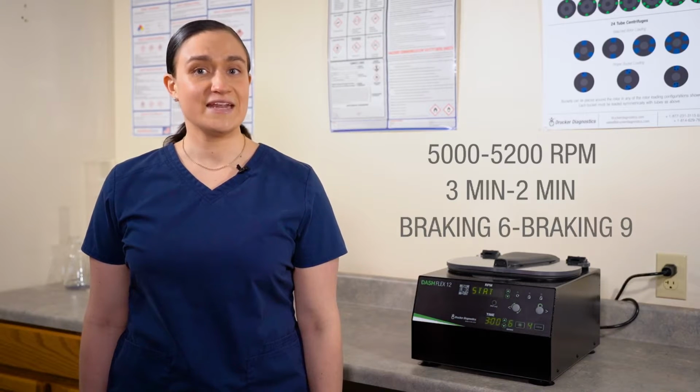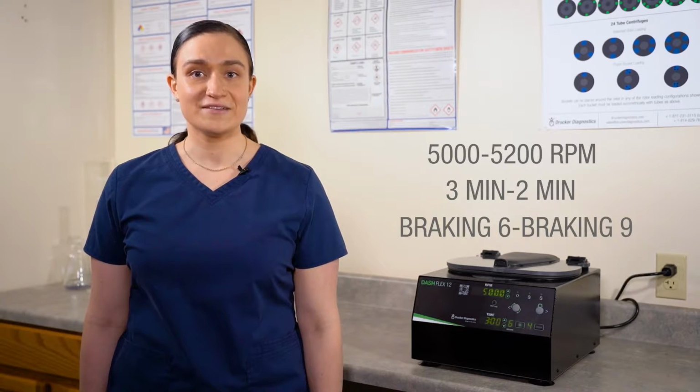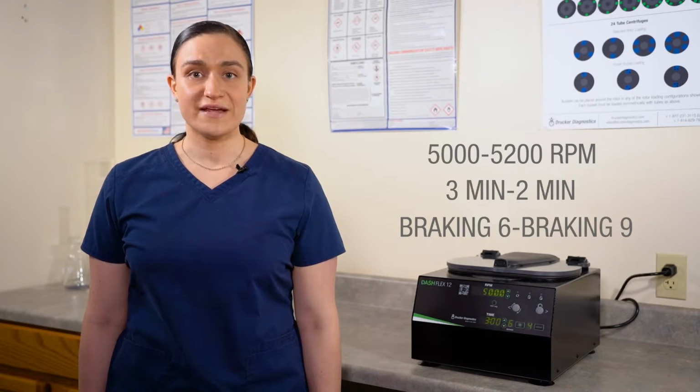Changing the name of your saved cycle is a different process. A link to the video for that is on your screen now. We're going to be editing our saved cycle from 5,000 RPM to 5,200 RPM, 3 minutes to 2 minutes, and brake of 6 to brake of 9. You can use the same process to edit any of these parameters to your specifications. And you don't need to edit all of them if you don't want to.